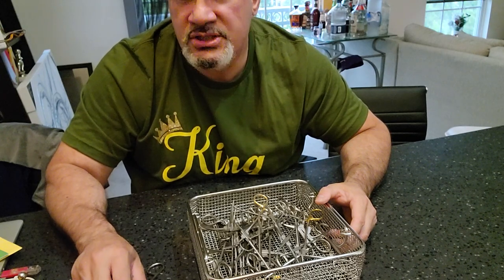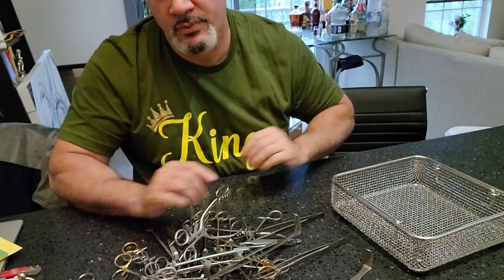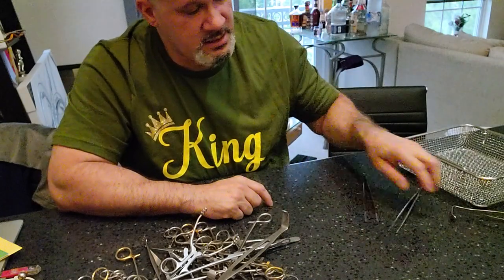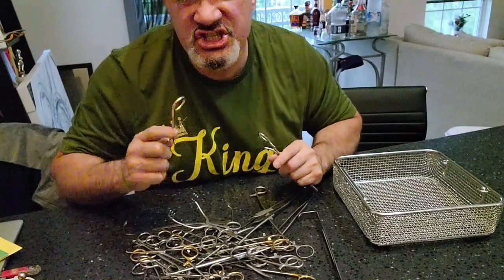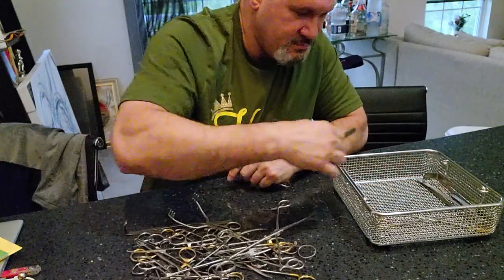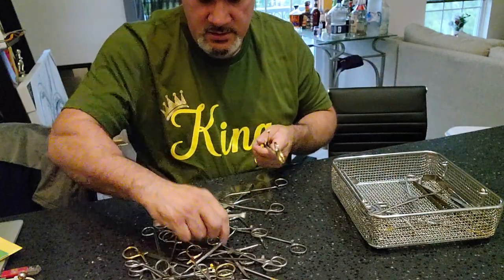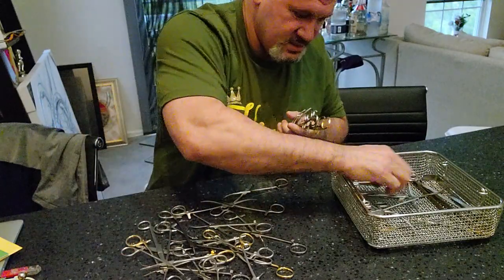If you're doing it carefully, it shouldn't matter whether you do it one by one or slide it out. This gets rinsed, put in the soapwater to soak, rinse the bio-burden out, put it in the sink — rinse, repeat, over and over again. When it goes back into the washer, my suggestion is to take sharps like scissors and forceps — sharps such as sponge sticks — and place them face down into the basket. Take all your instruments sharps-down in the basket.